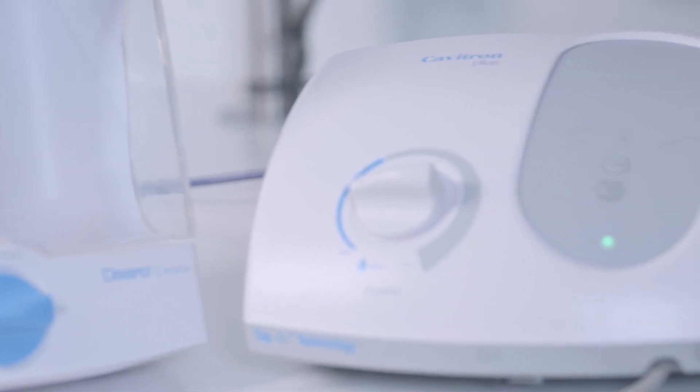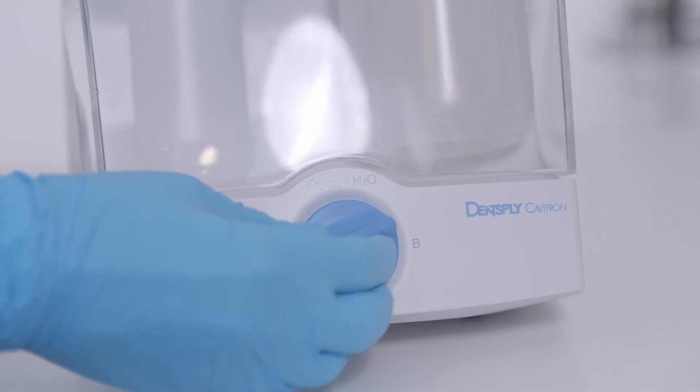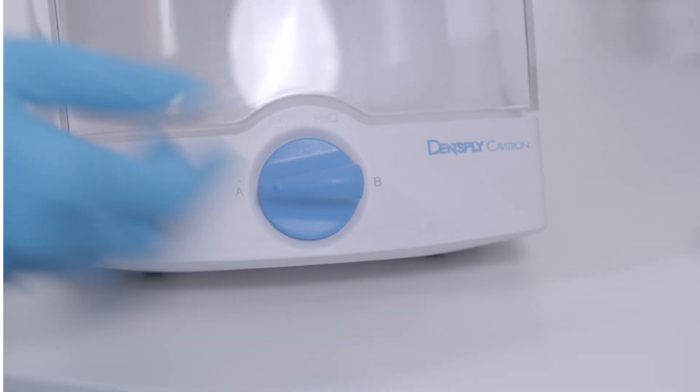Your system is now ready for use. Follow the CDC's guidelines for frequency of testing water lines and performing testing to your Cavitron scaling system on those intervals.